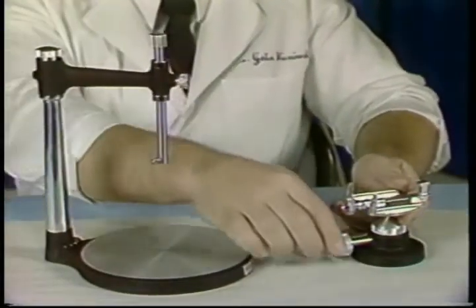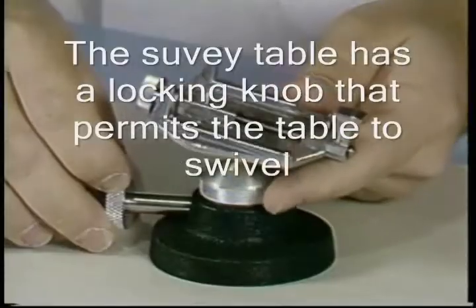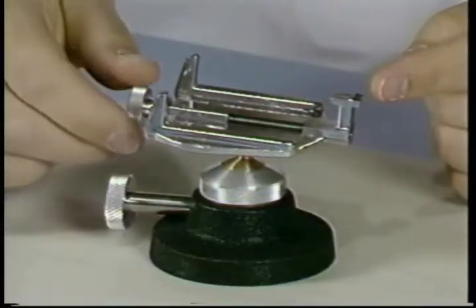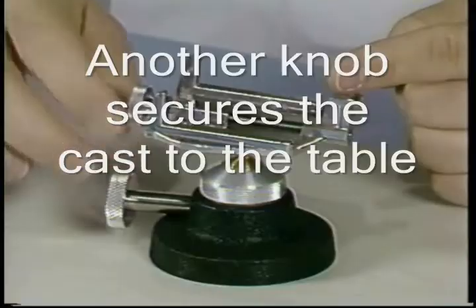The partial surveyor consists of several components. The survey table has a locking knob that permits the table to swivel. Another knob allows the cast to be secured to the table.